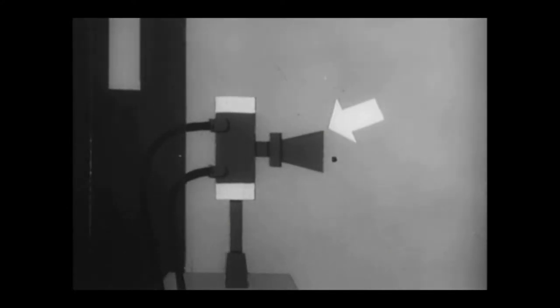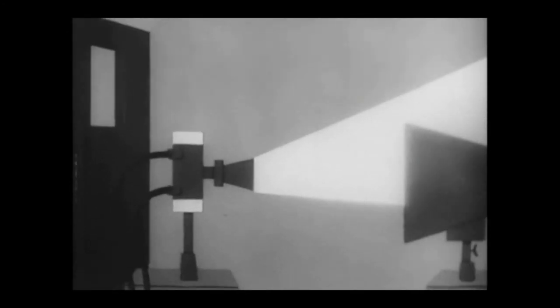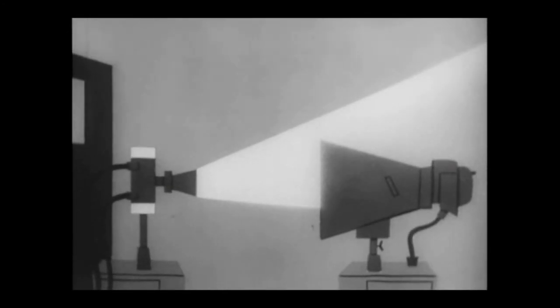Never remove the cone or diaphragm from the tube housing. Always be sure that your primary x-ray beam is properly coned and the tube is properly aligned. An improperly coned or poorly aligned primary x-ray beam can increase secondary radiation by two to three times.